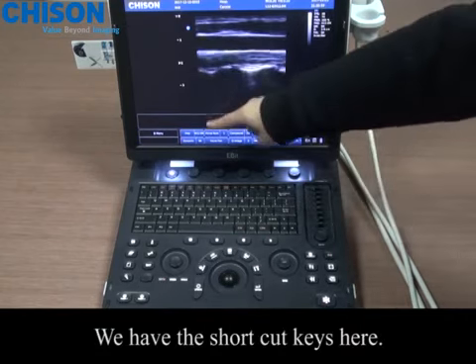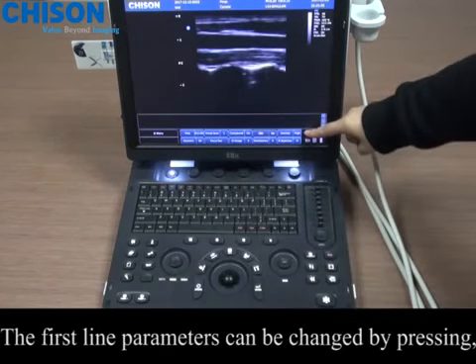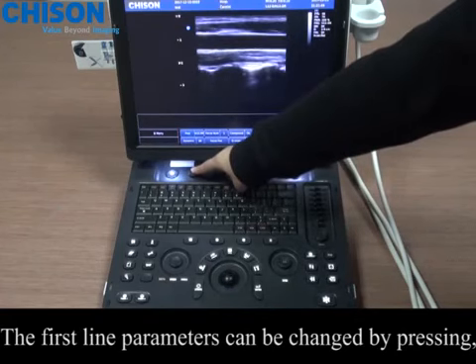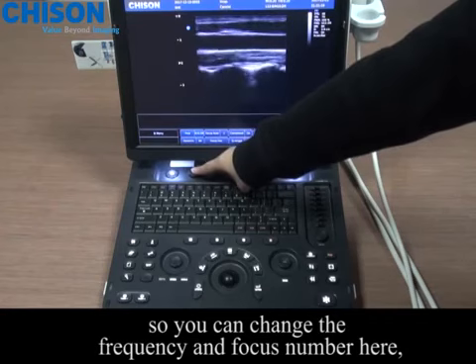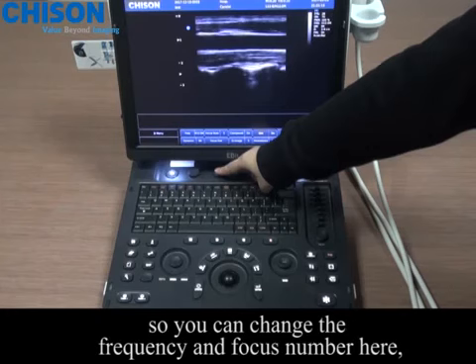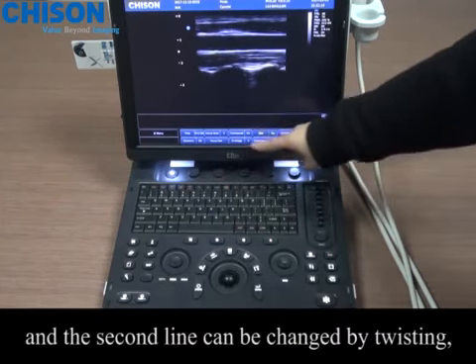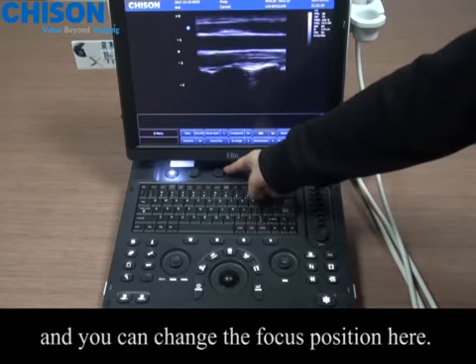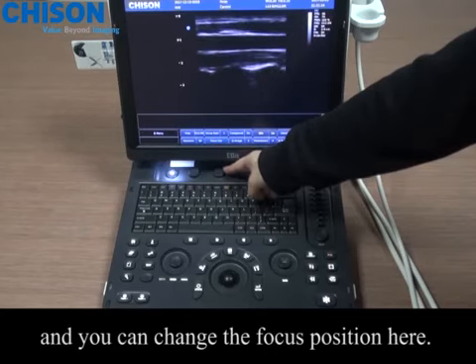We have the shortcut keys here. The first line parameters can be changed by pressing, so you can change the frequency and focus number here. The second line can be changed by twisting, and you can change the focus position here.